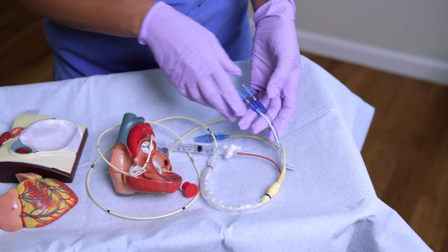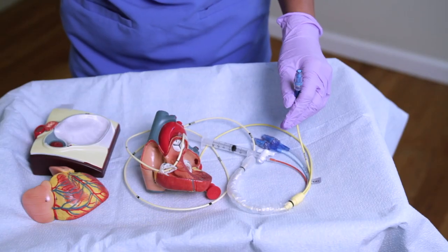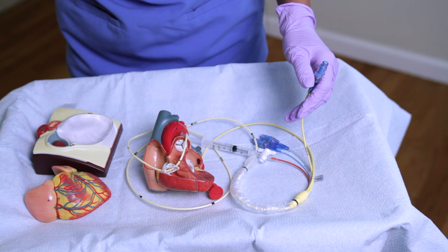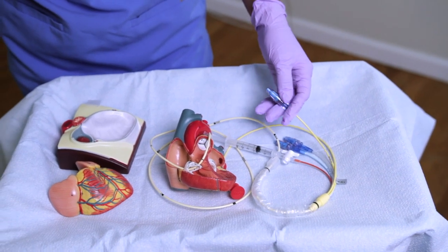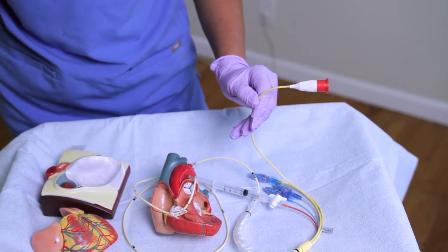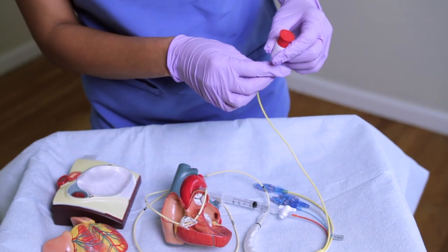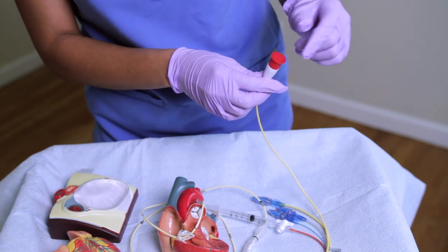Moving on to the yellow port — this monitors your PA pressure. It is marked as your PA distal port and is color-coded yellow. It provides continuous measures of PAP pressures which reflect cardiac pressures. The thermistor lumen attaches to a connector cable for cardiac output measurement, and you're also able to measure temperature as well. This connector lumen is white and also has a red port for attaching cables.